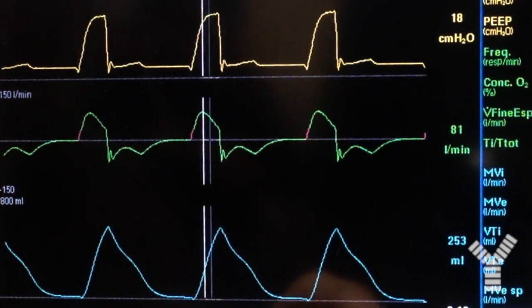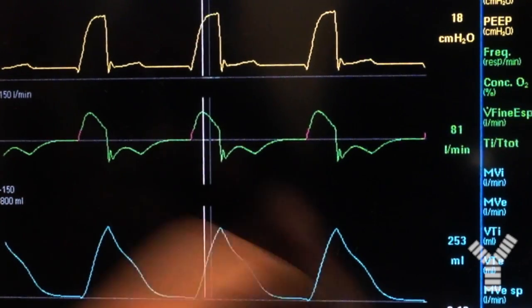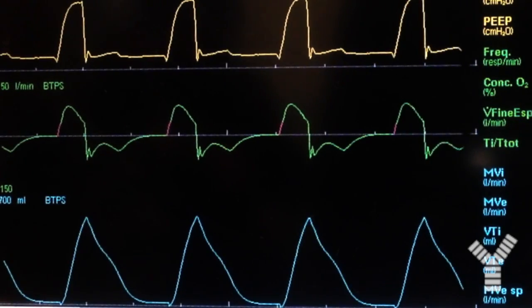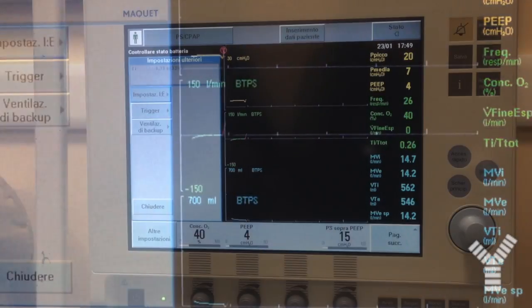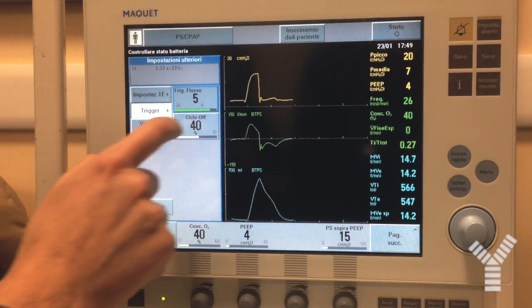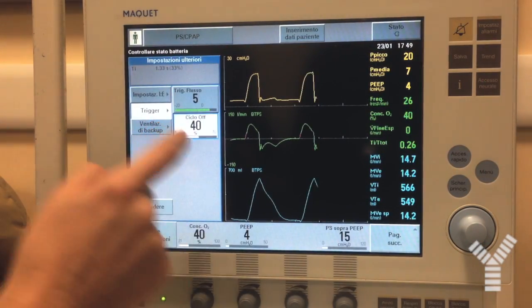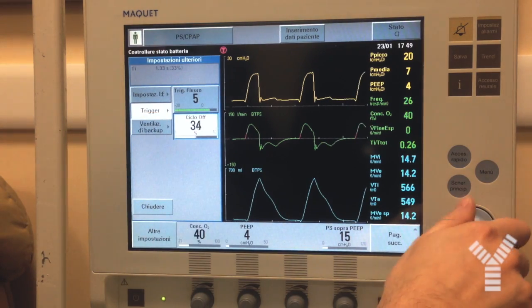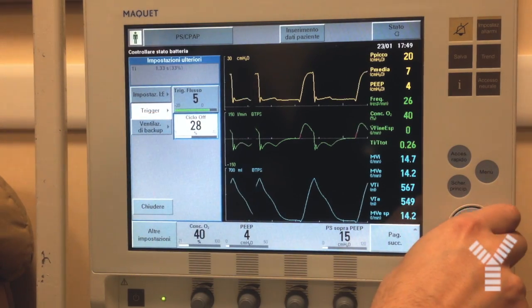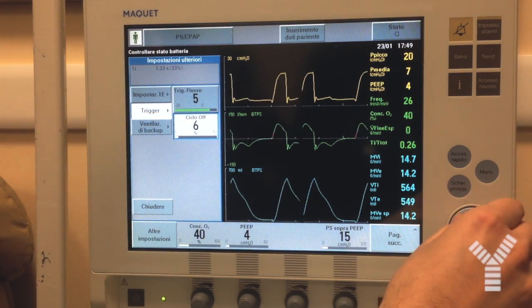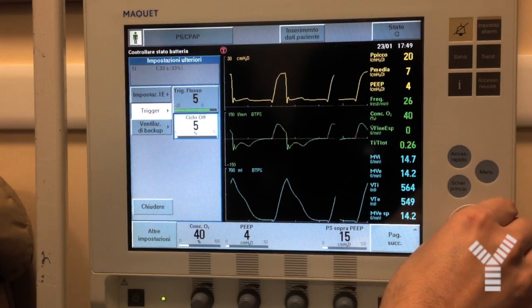To fix this, we go to the setting of the expiratory trigger and we make the value lower — let's say 5%.